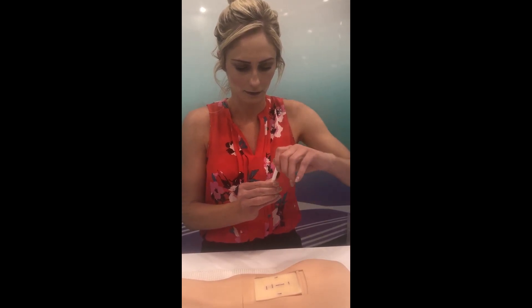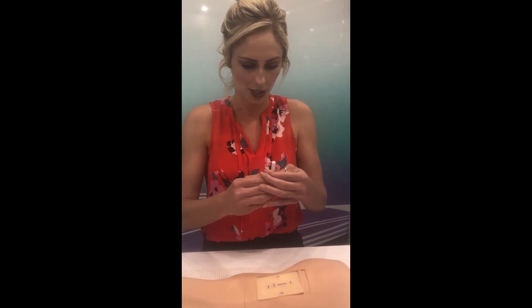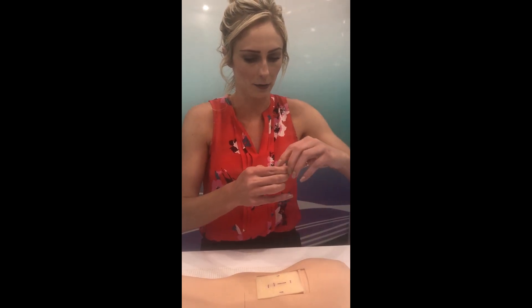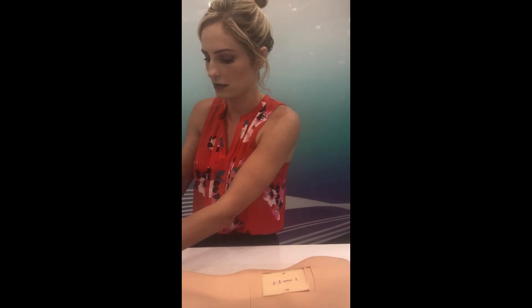Straight up. And then you're going to pinch and pull. You've got to pinch the two rigid sides — pinch here. Let's see — do I pull? Oh. There you go. And then I pull this cap. There you go. Now take the tool and line up the ear holes.